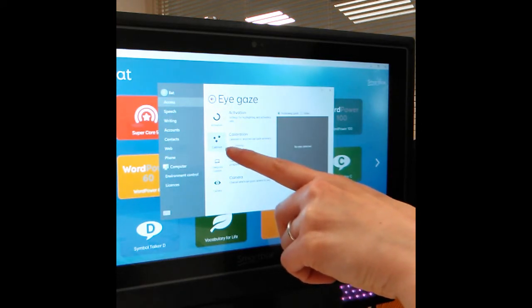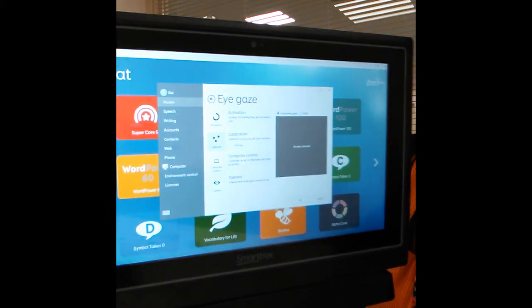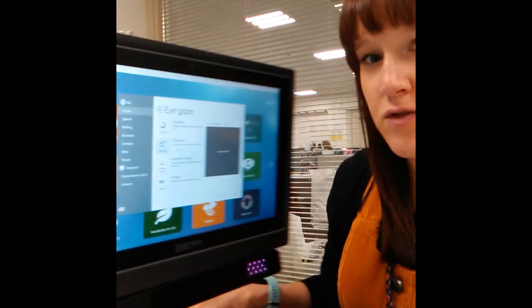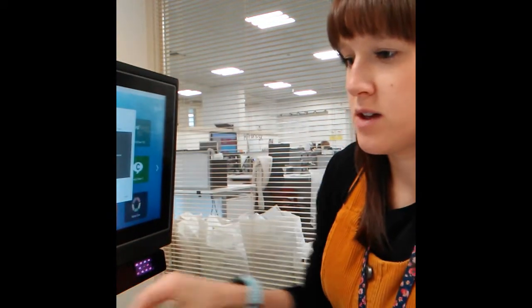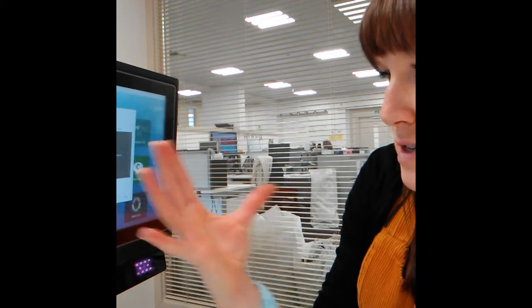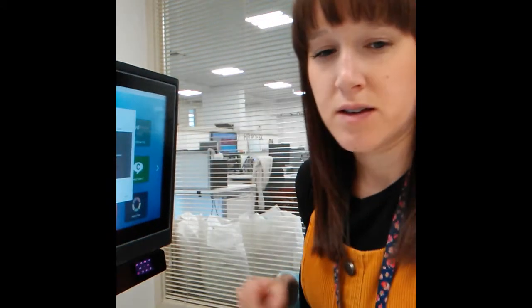So that's this point here. What we need to do is put the device in front of us so that your eyes and your face go in front of the screen. I'll try and show you.